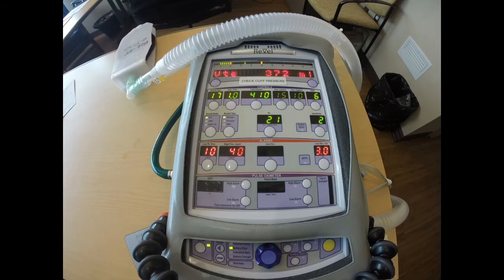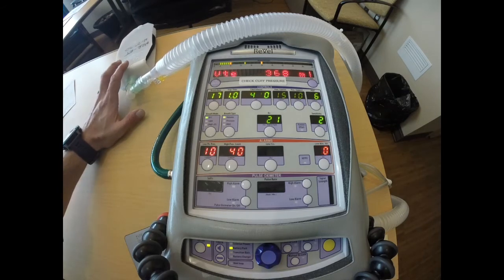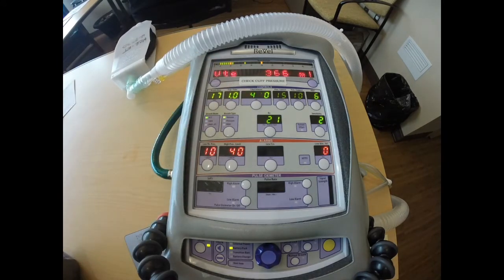So let's set up PRVC on our ventilator for a patient. When I arrive at the facility, I'm going to check their ventilator or ask their respiratory therapist or transferring RN what the peak inspiratory pressure is. I'm also going to have them check the plateau pressure. I would prefer to set up our ventilator on a test lung, and that way the ventilator goes through its 3 set breaths and starts to deliver the tidal volume that I would like to achieve.